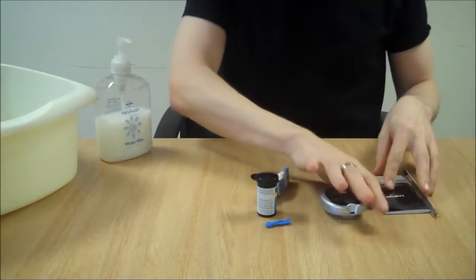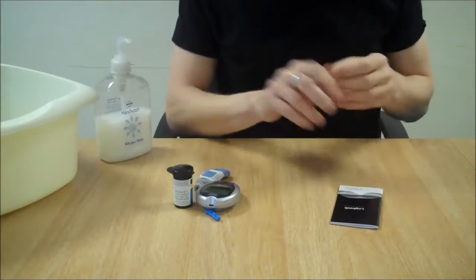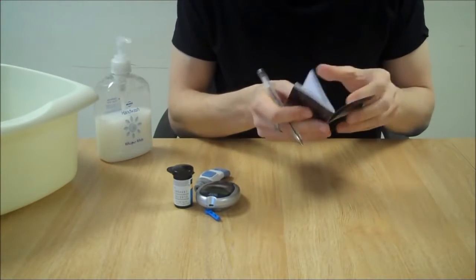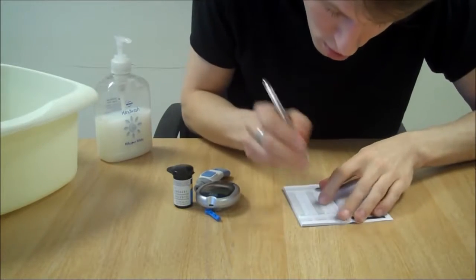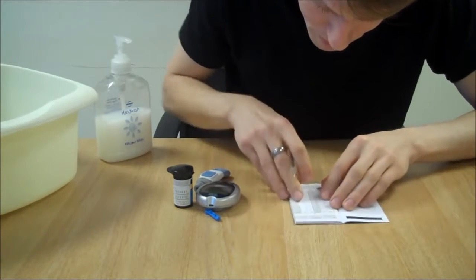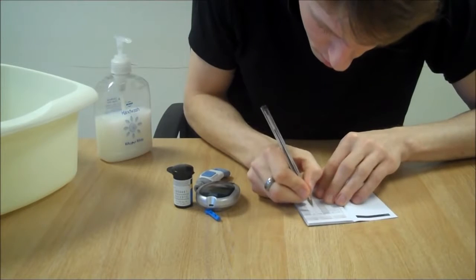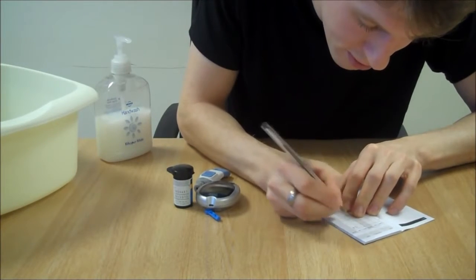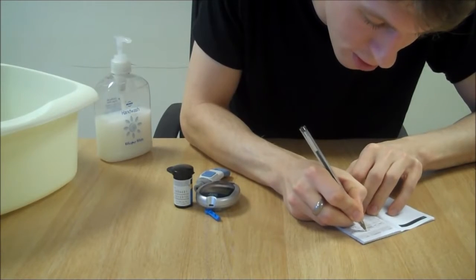Finally, record your results in a blood glucose monitoring diary as I have here. That's 3.6, and that's after lunch.